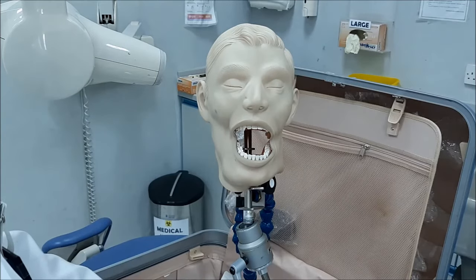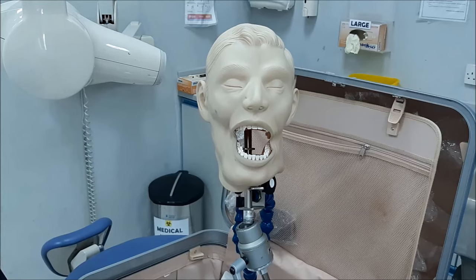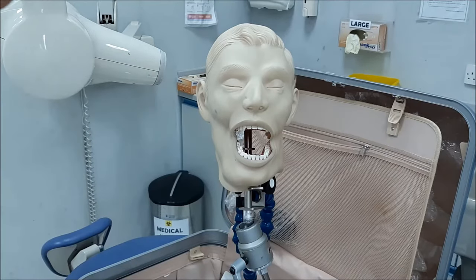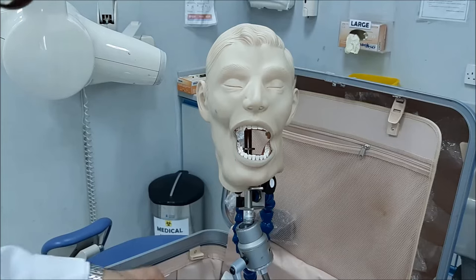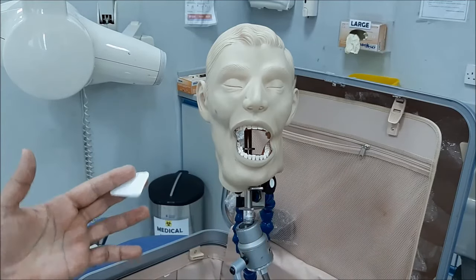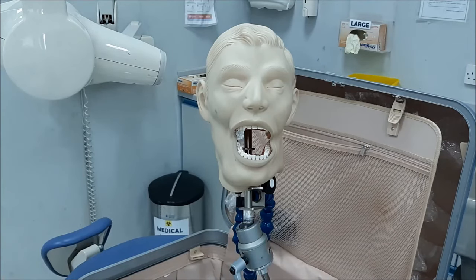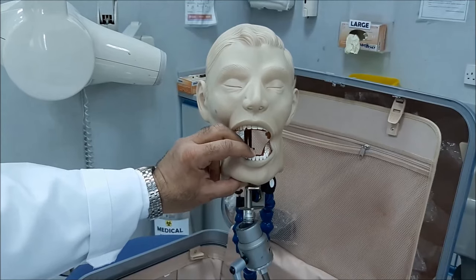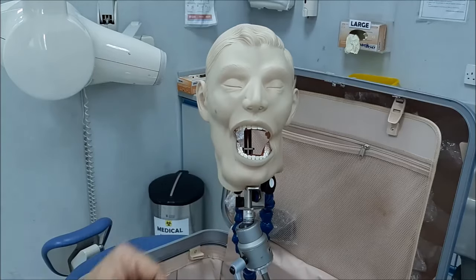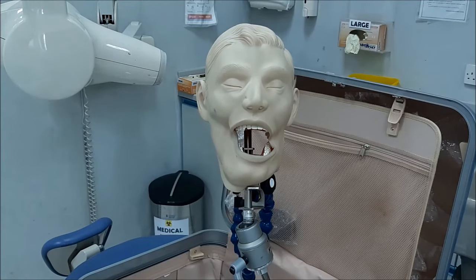Sometimes you need to cover areas of the upper maxilla or the mandible and you're not interested in the distortion of the images that will result. You're not interested in teeth — you're actually interested in the areas supporting the teeth, like in cases of fractures or impacted teeth in the palate, the maxilla, or the mandible. In these cases, you shift to another technique: the occlusal technique.